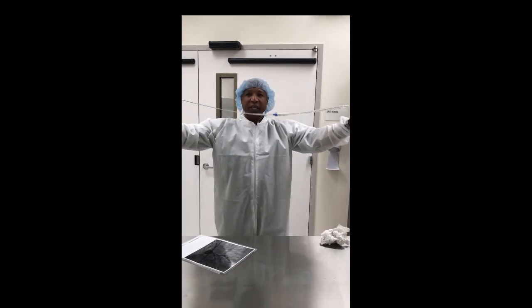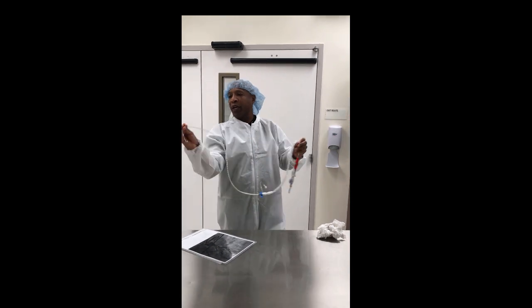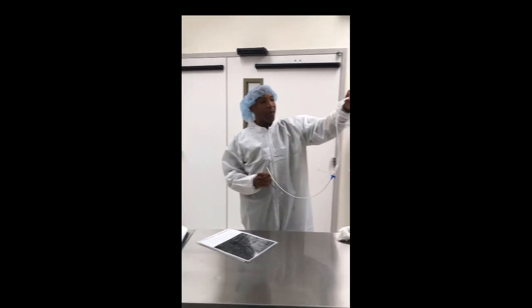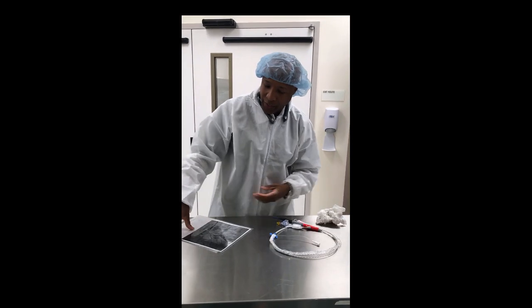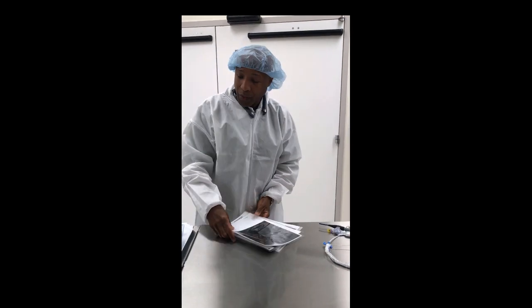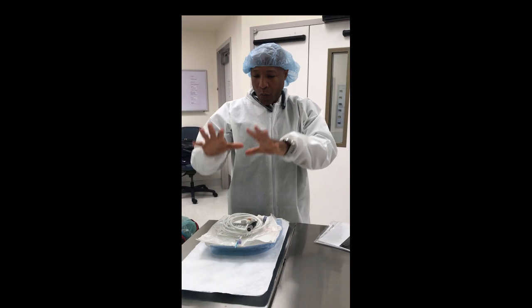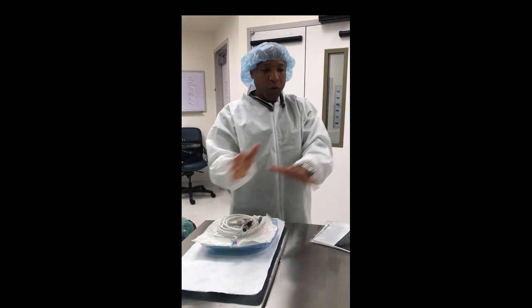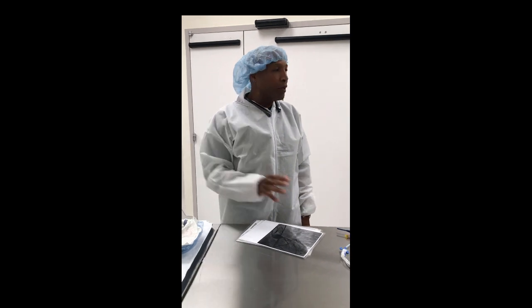Number one, I'm going to give you a tip to tail of the Impella catheter — the working end goes into the heart and the back end connects off the table. Number two, I'm going to help you understand what it's doing when it's in the body. And finally, we're going to go through the components when you open the box, what goes on the field, and then you're going to do a set up as if there was an Impella patient here.